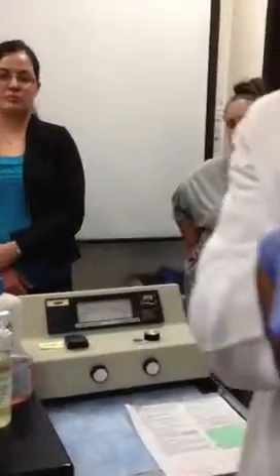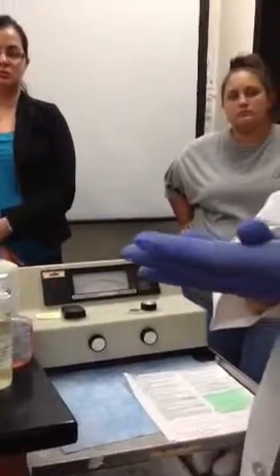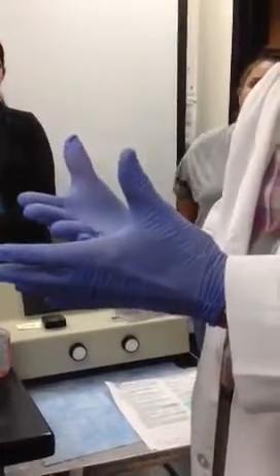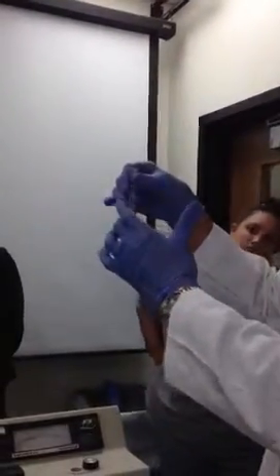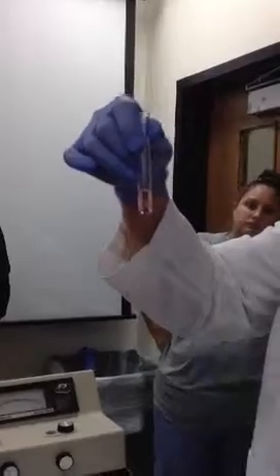Now, what we're going to do is measure the concentration of cholesterol in a patient. But in order to do that, we've got to have a standard to compare it to, right? So this tube right here contains a known concentration of cholesterol. We happen to know that the concentration of cholesterol in this tube is 200 milligrams per 100 milliliters. Is that standard for measurement? No, it could be anything. We could compare it to anything. It just happens to be 200. All right?